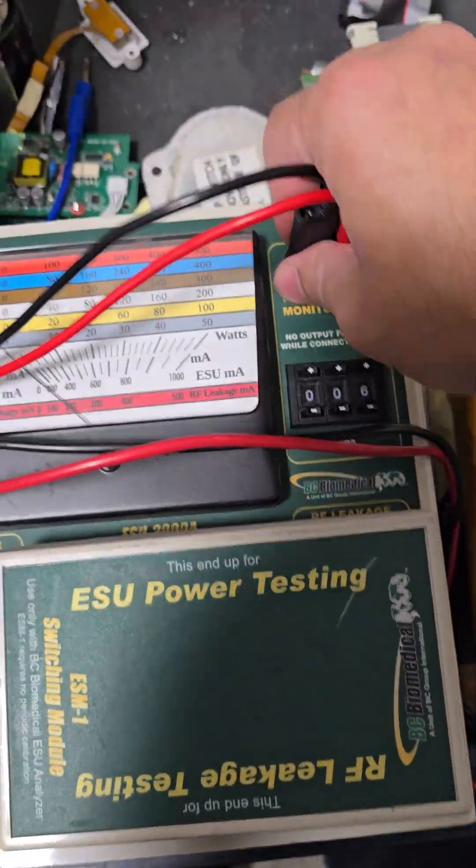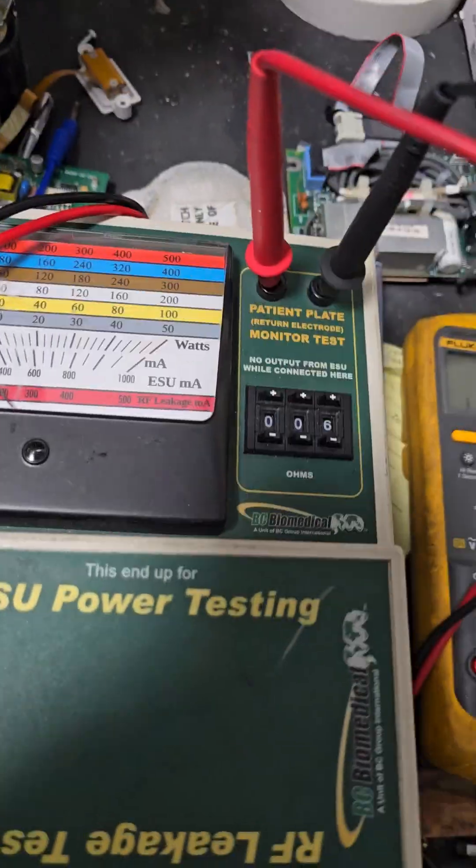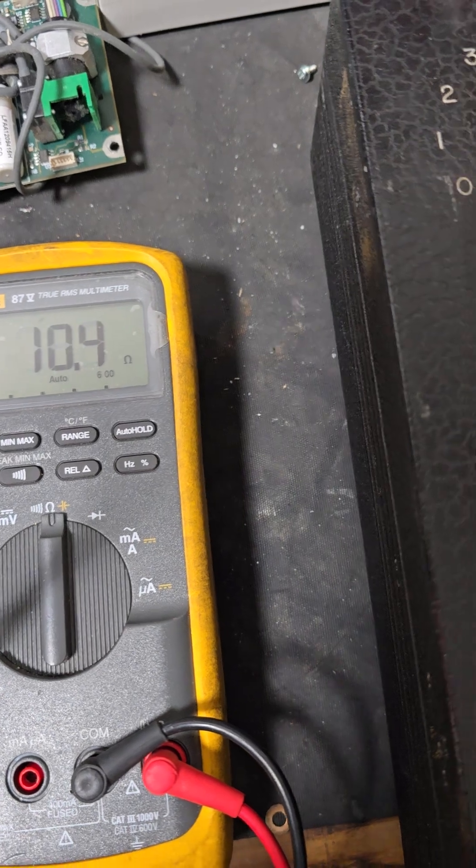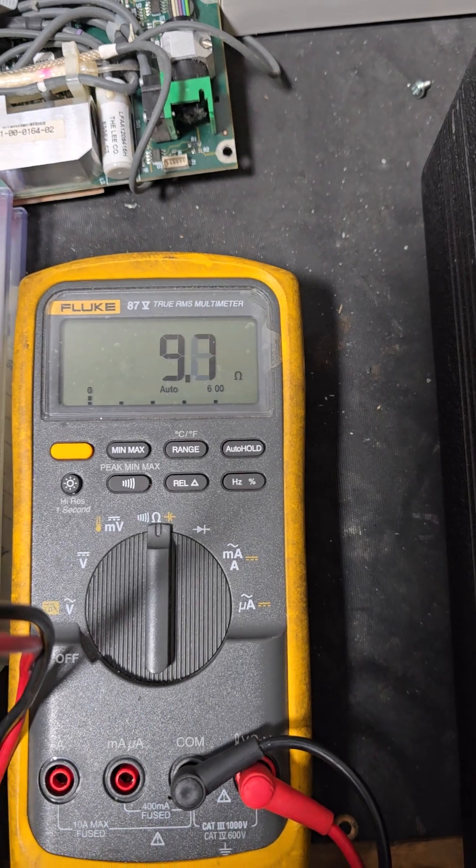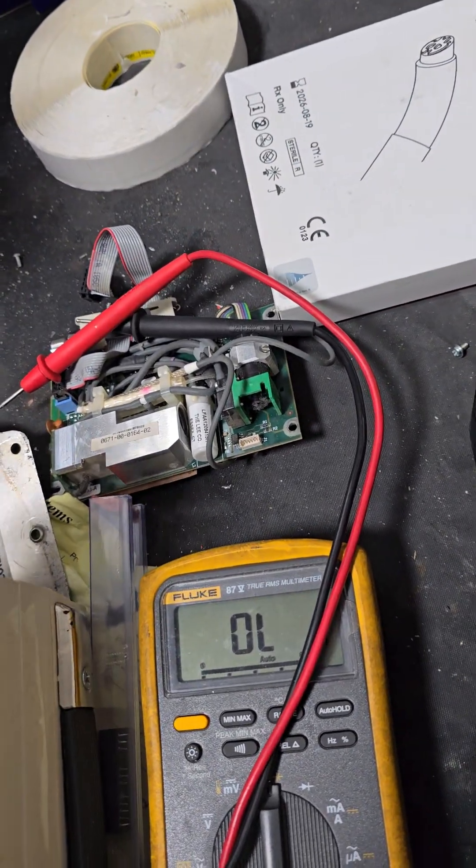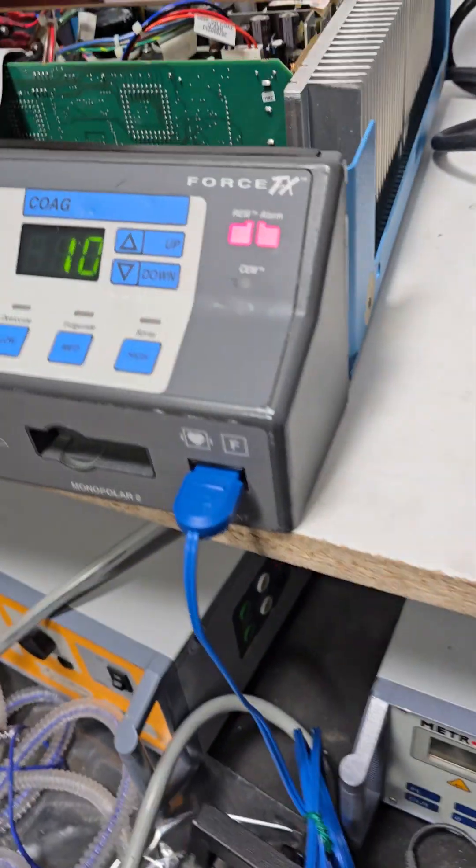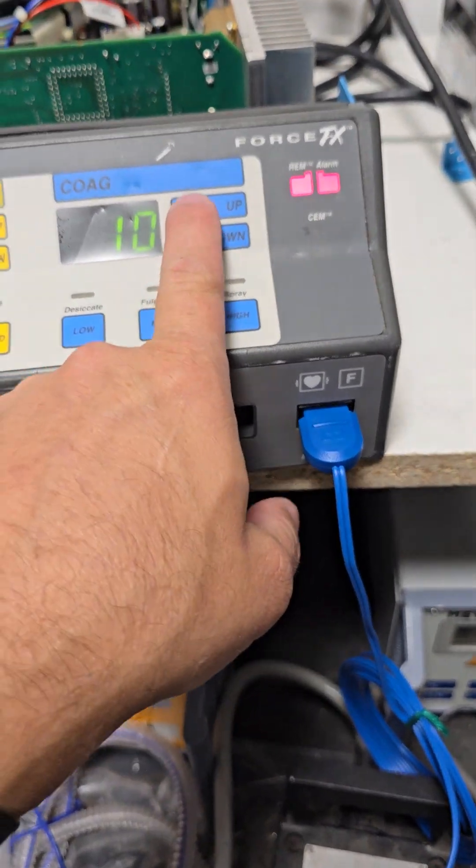All you've got to do is verify where you are. So multimeter leads, we are not worried about the resistance value of the cables. When this thing says 6, we are this, so let's go a little lower. That's too low. We've got stabilized, pretty close, 10.2 ohms, I'll take that. So put these back in. Give it a good 10 seconds. Count one Mississippi, two Mississippi, however you want to count. About 10 seconds.